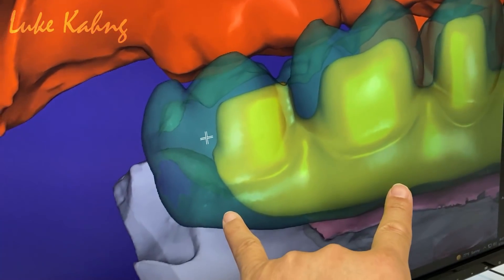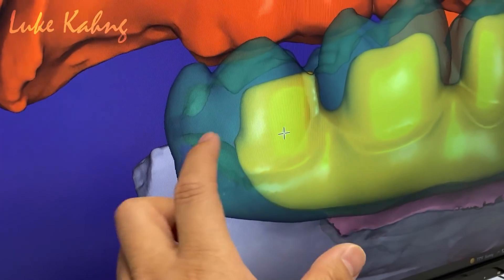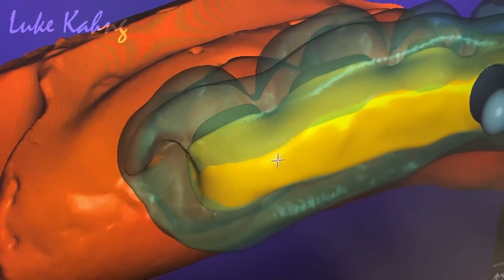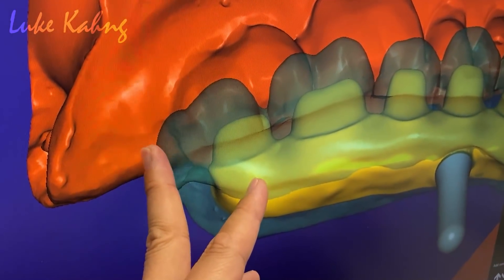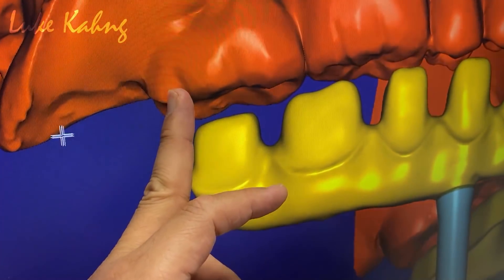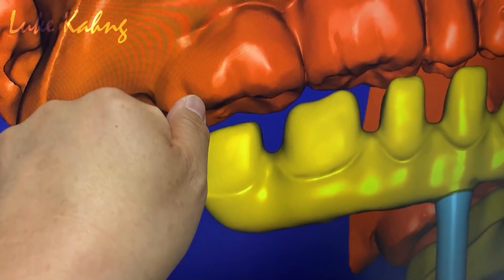This is a long pontic from here. Show me the pontic underneath. That one we don't need that much. So what I try to do — if this is PMMA, decrease this, then we can cut it and block here.